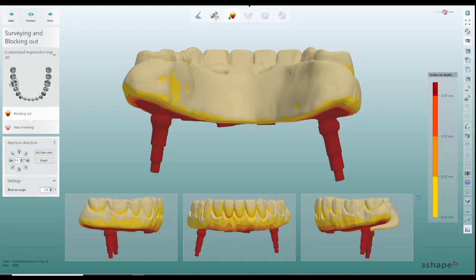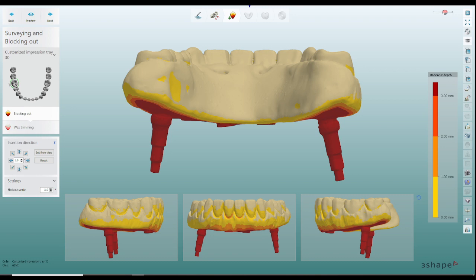Hi everybody. So today I wanted to show you a couple of different modifications that I have done recently for my drilling guides or my hybrids.